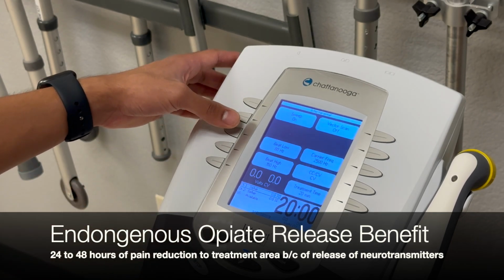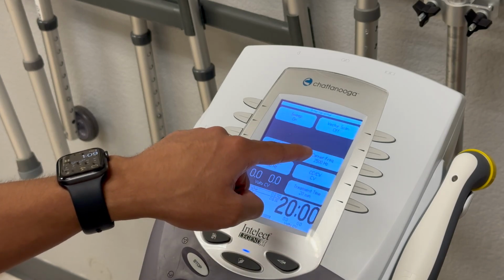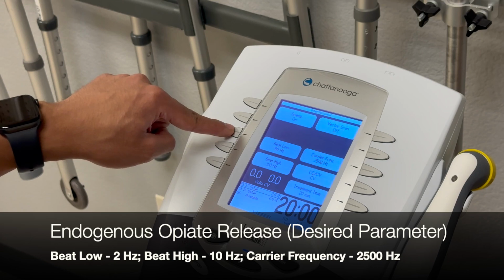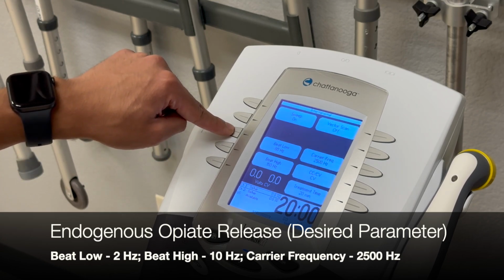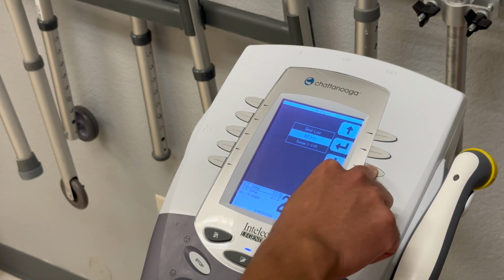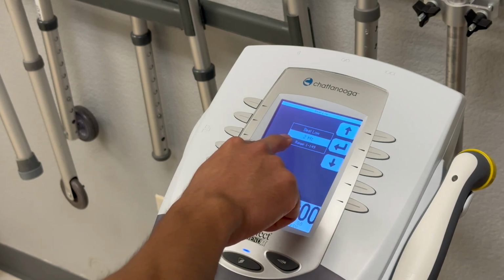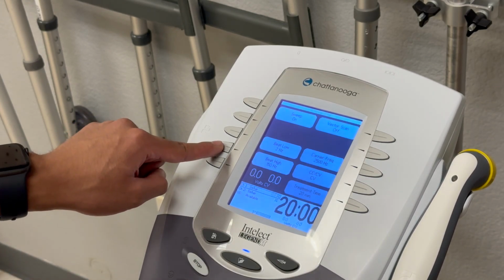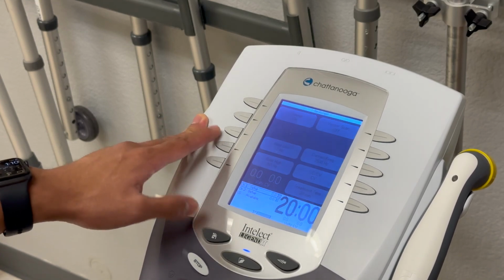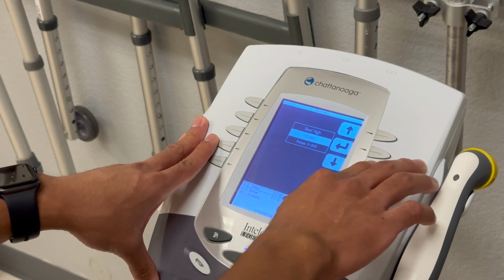We'll go ahead and adjust the beat low frequency to match the parameters to address opiate release. So beat low will be changed to 2 hertz. We'll go ahead and press this button, and change this number all the way down. So tap this button all the way down, and we're just going to put 1 up to 2 hertz. Now our beat high number, we're going to press this button, and we're going to change that all the way down to 10 hertz.